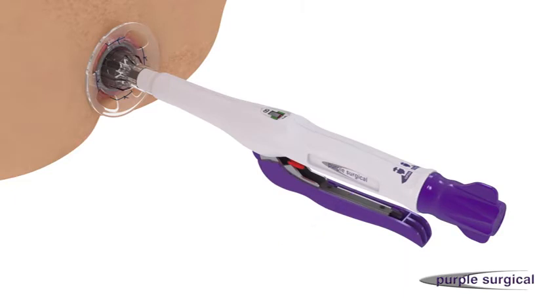Hold the squeezed firing handle in place for 30 seconds. Ensure that the firing handle is fully squeezed to guarantee proper staple formation and cutting of the tissue. A partial or incomplete handle squeeze may result in unacceptable staple formation or an incomplete knife cut.